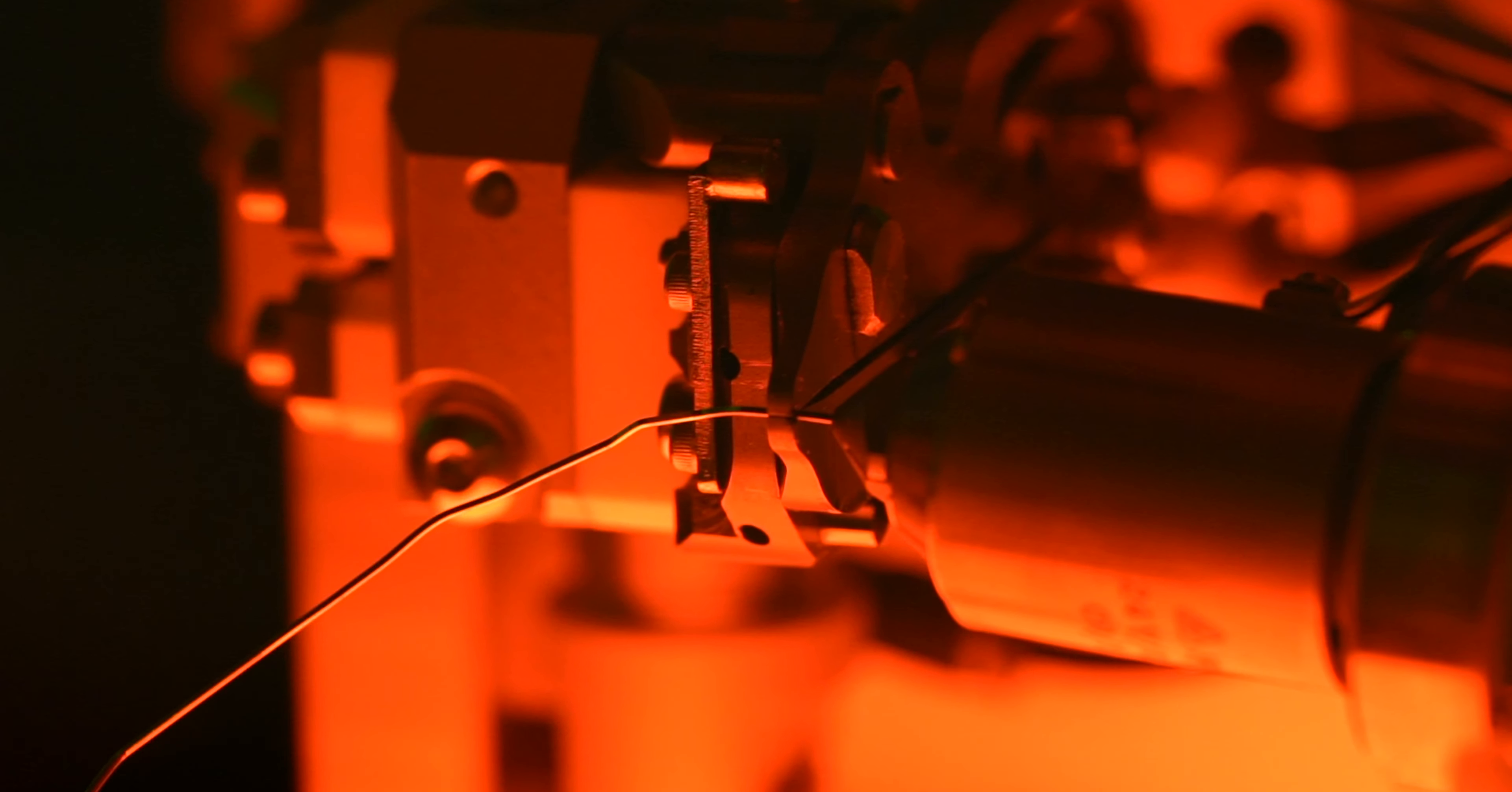The SureSmile Advance platform is the one that I use extensively and that gives me the capability of moving teeth the conventional way with brackets and wires. The wires are made in such a way that it's extremely precise with robotically bent arch wires that give us incredible control over the teeth.